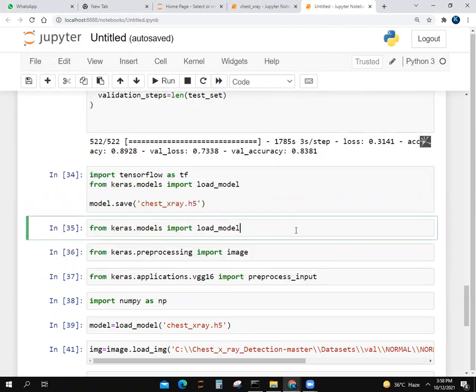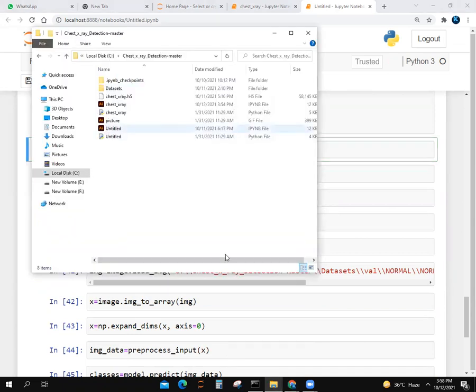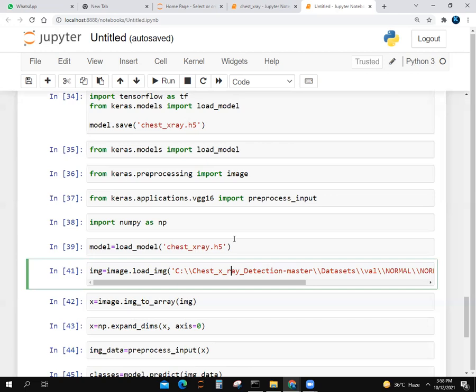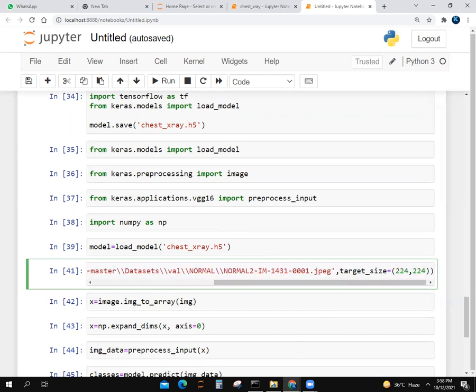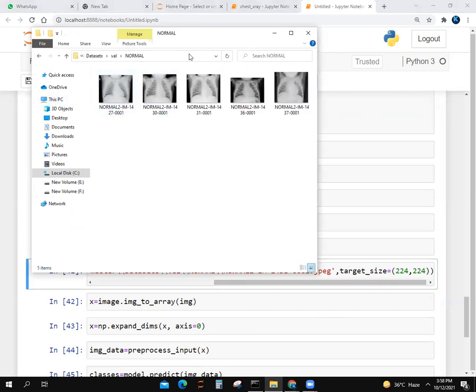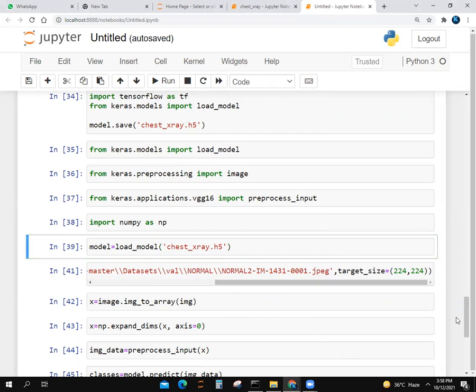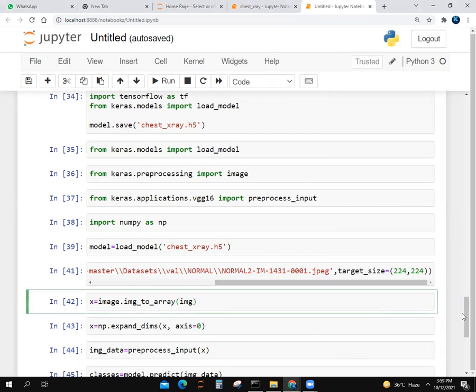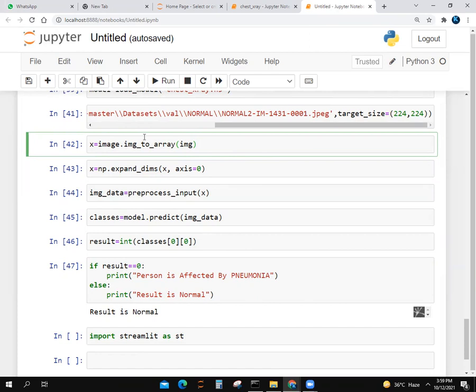We imported many libraries. We import NumPy again and load model chest_xray.h5. We load it again. We write an image variable with image.load_img and give the URL of a normal image. You can see we go to validation folder, normal. I took the URL from here with double slash. We give target size 224 by 224. We change our image to array with image.img_to_array. We use np.expand_dims with axis 0, then preprocess_input.